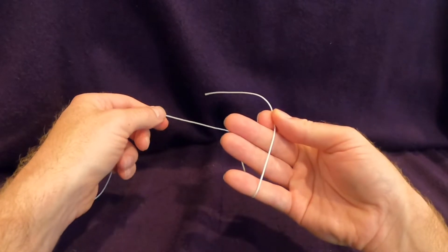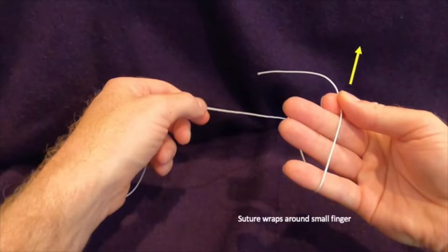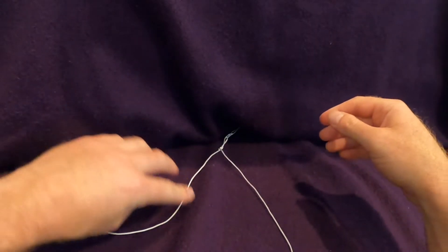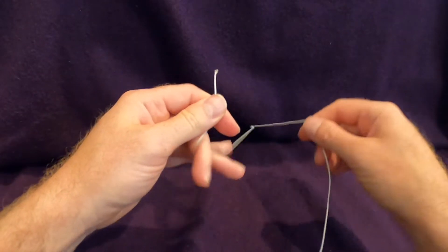The starting position begins with the suture wrapped around the small finger and the tail pointing away from the person tying the knot. The starting position is the same regardless of which hand is doing the knot tying.